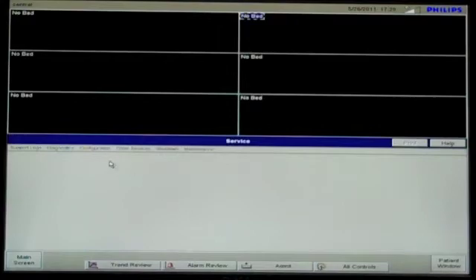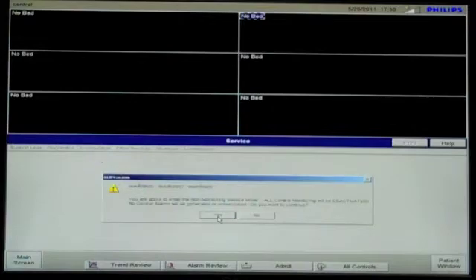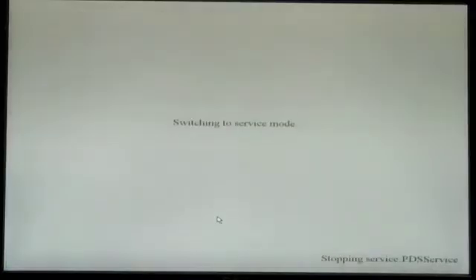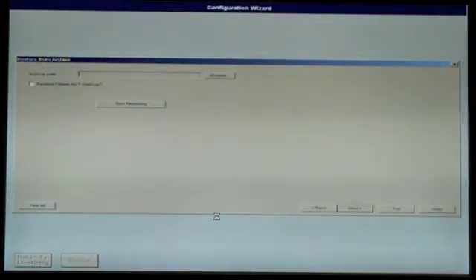Click Configuration. In the drop-down menu, select Config Wizard, then click Yes to confirm. The system will then exit Monitoring Mode and boot up into the configuration software.